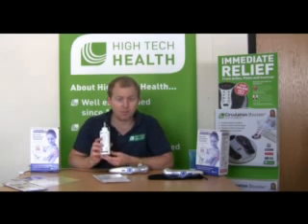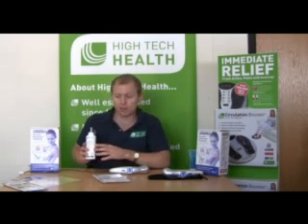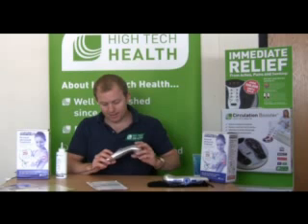There's also a 250 gram gel that comes in your introductory pack. For those who order the bumper pack, there are some real savings on both the bumper pack and the intro pack, so get in fast.